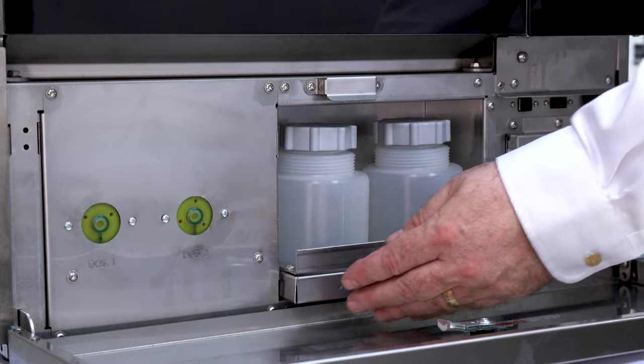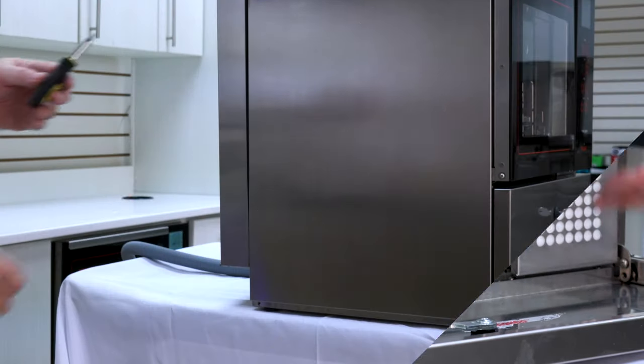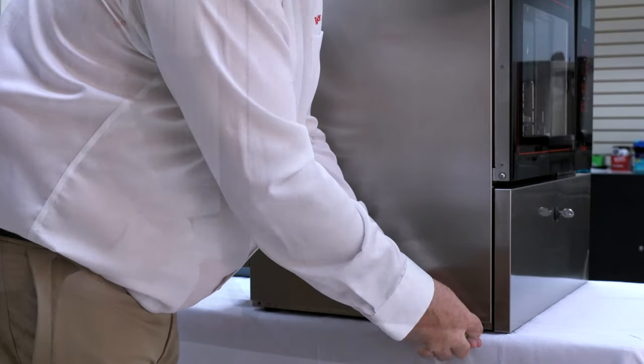Here is the HEPA filter. To disassemble the machine, remove the screws at the base of the machine.